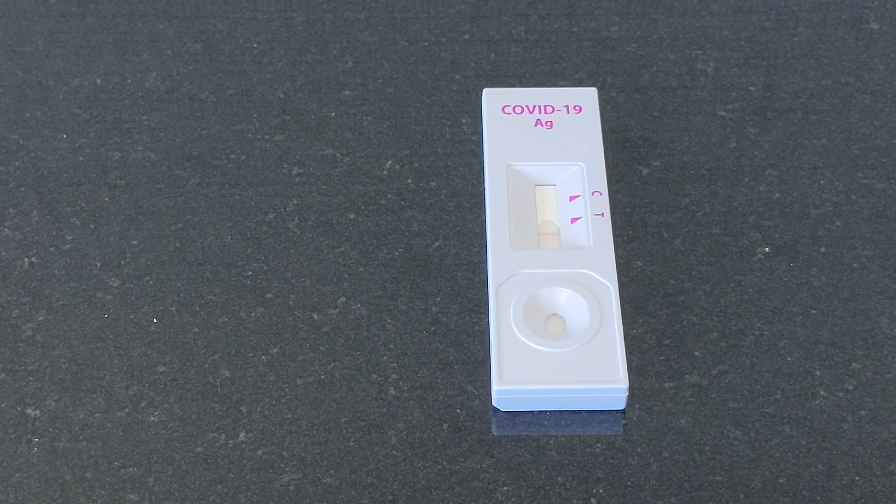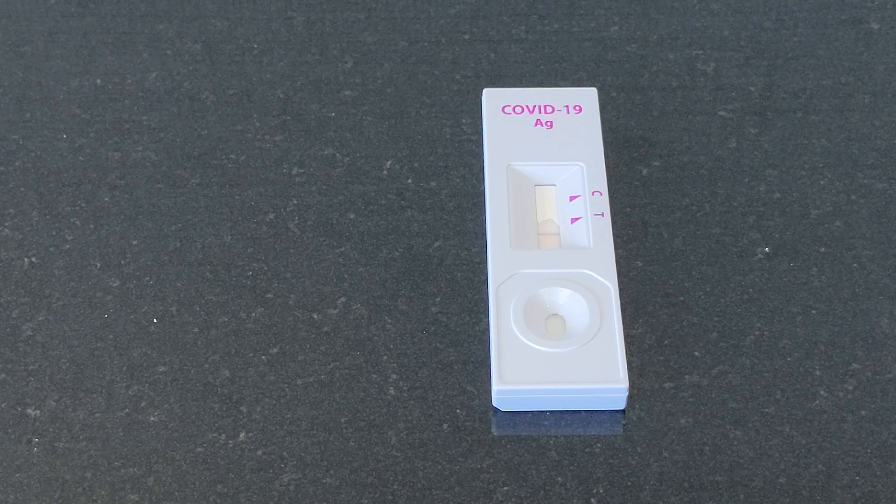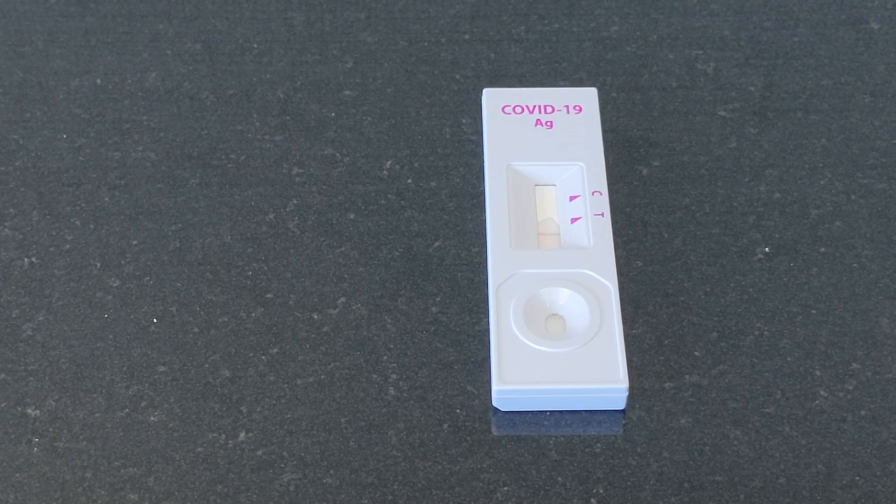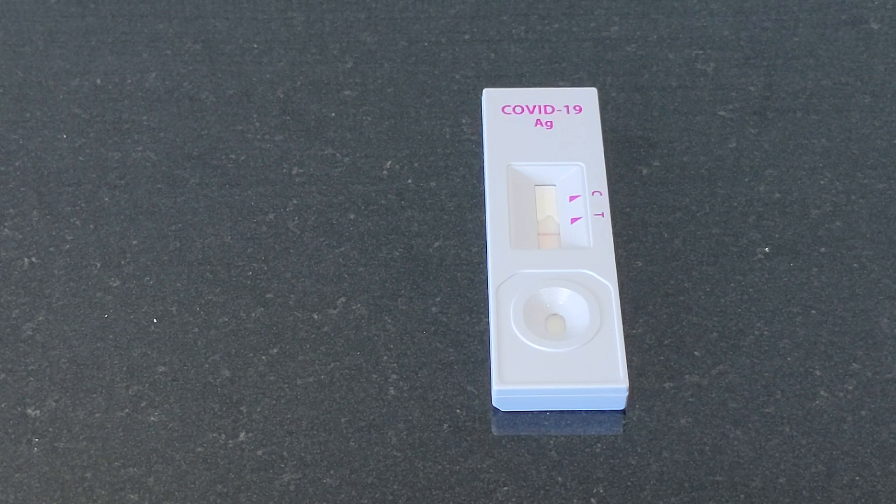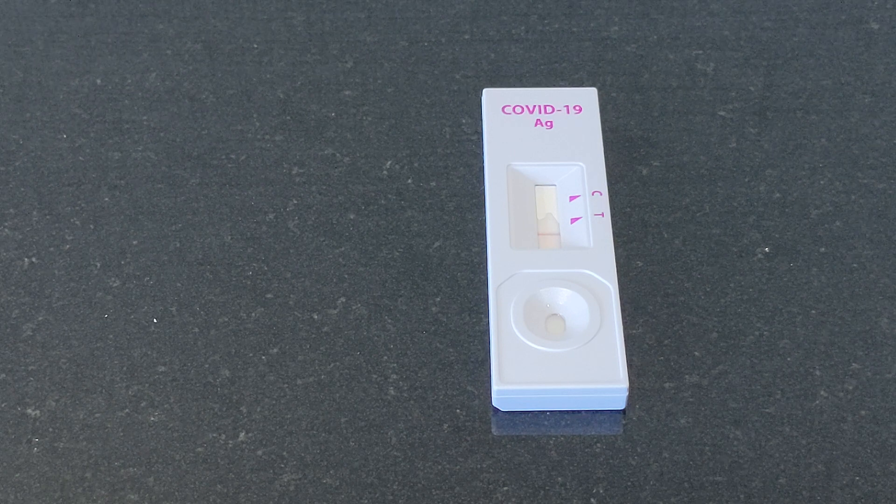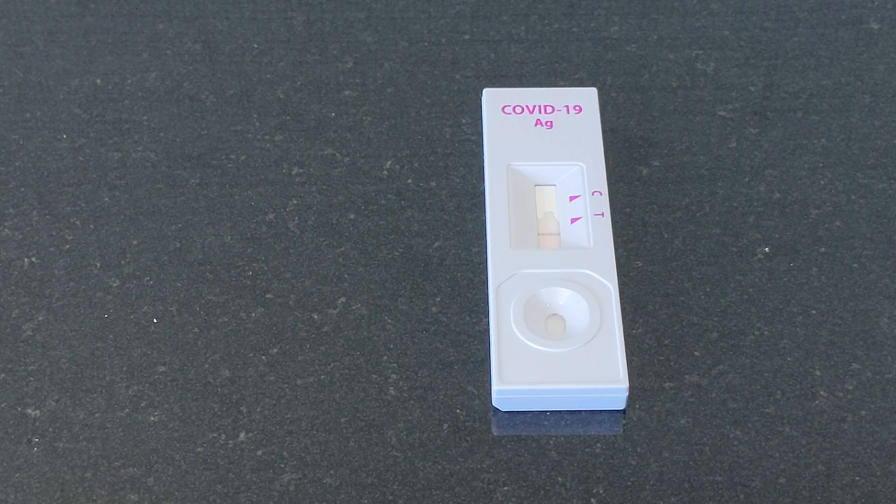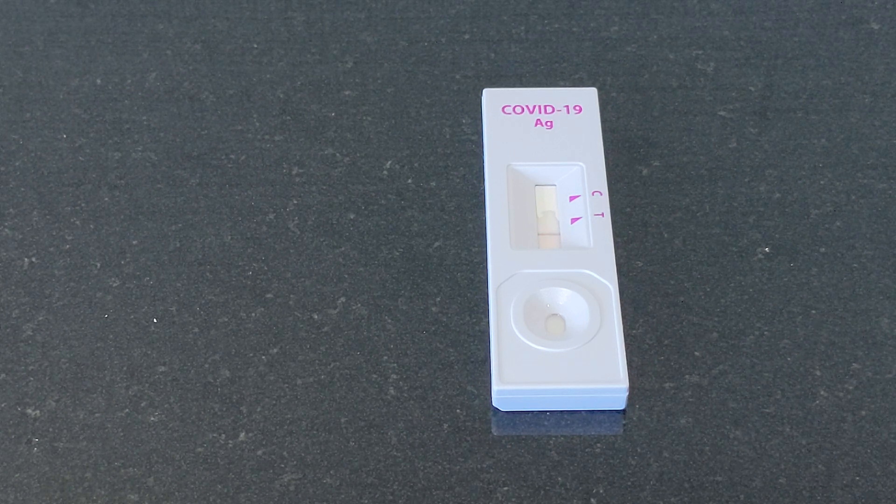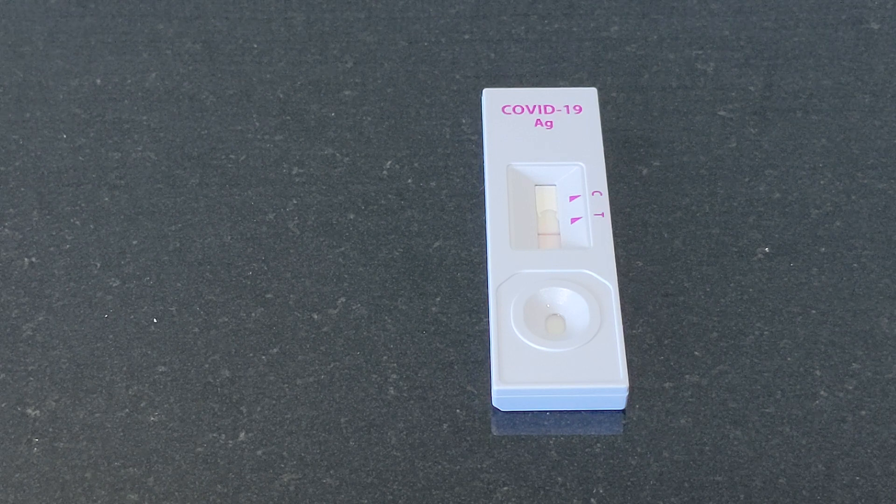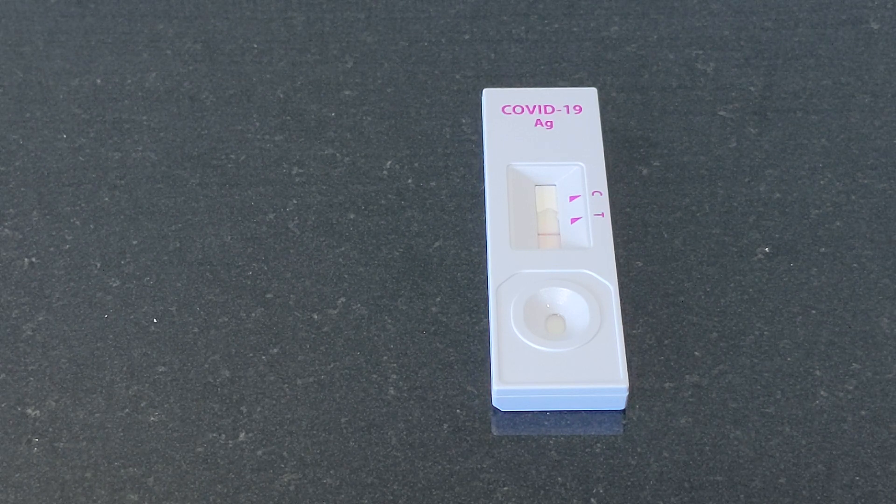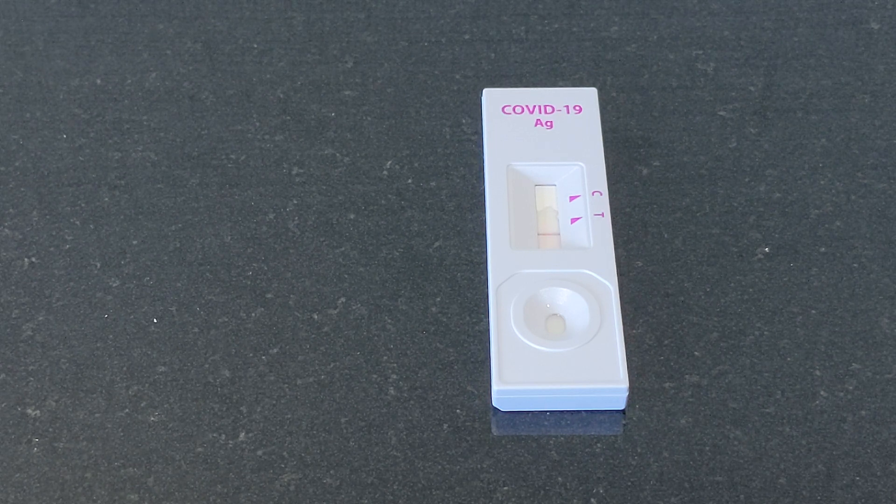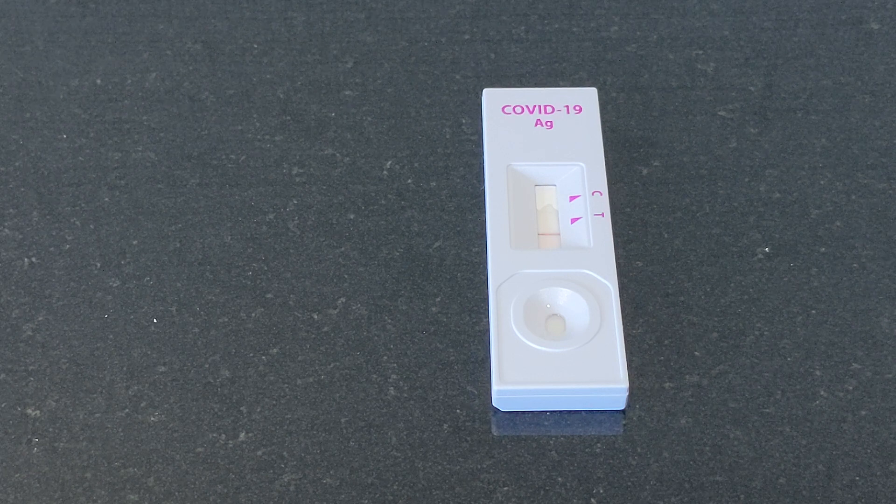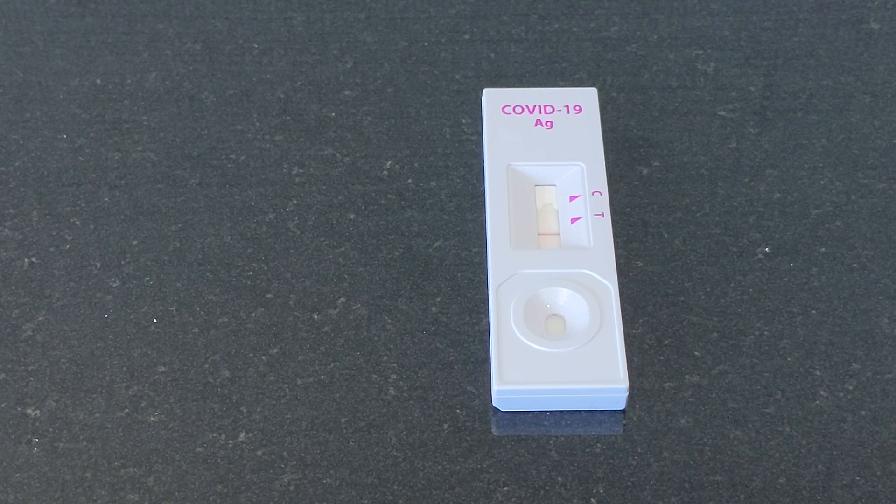So that's why I'm always curious how a person tests positive. If you are negative, you won't get a line from the T and you only get a line from the C side. So when you have a swab test, you will get to know quite immediately that you are positive for COVID.